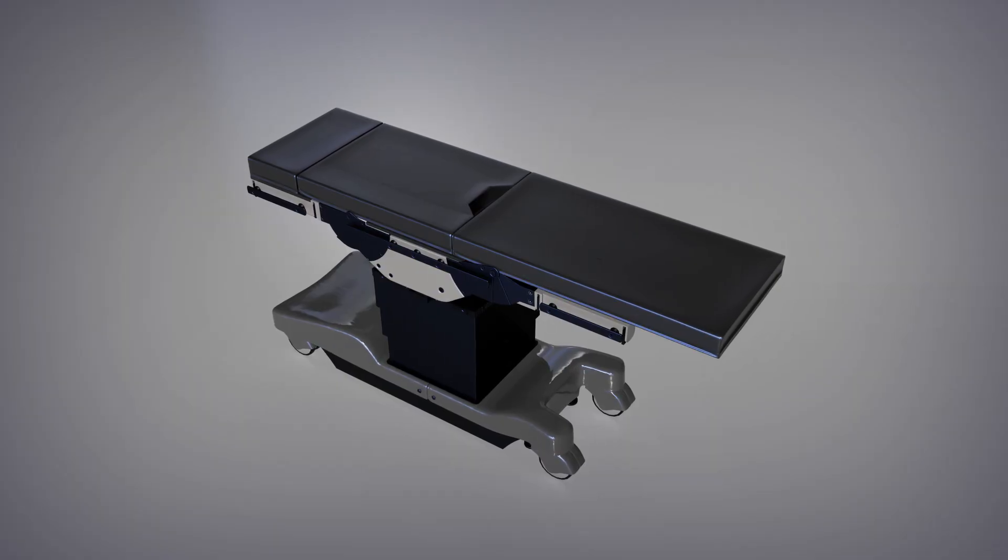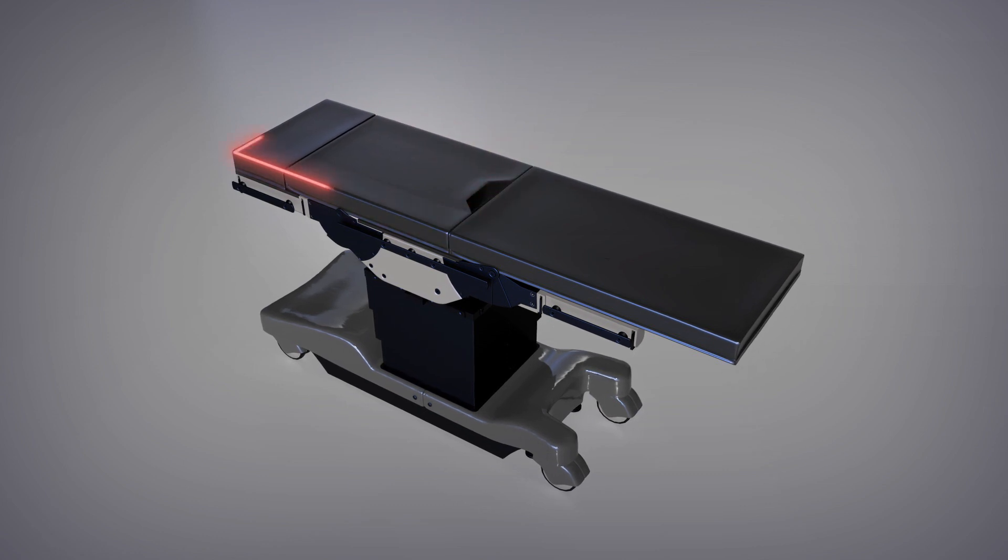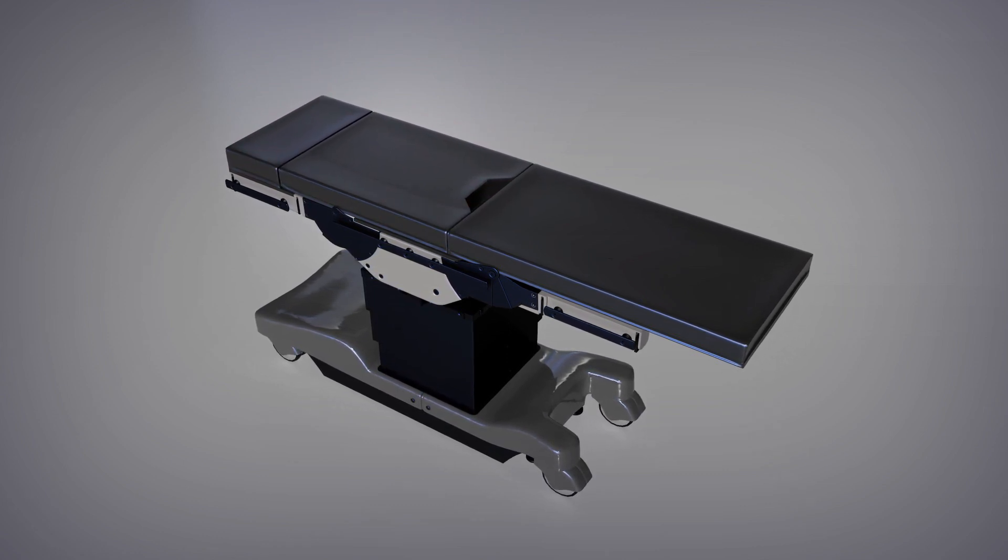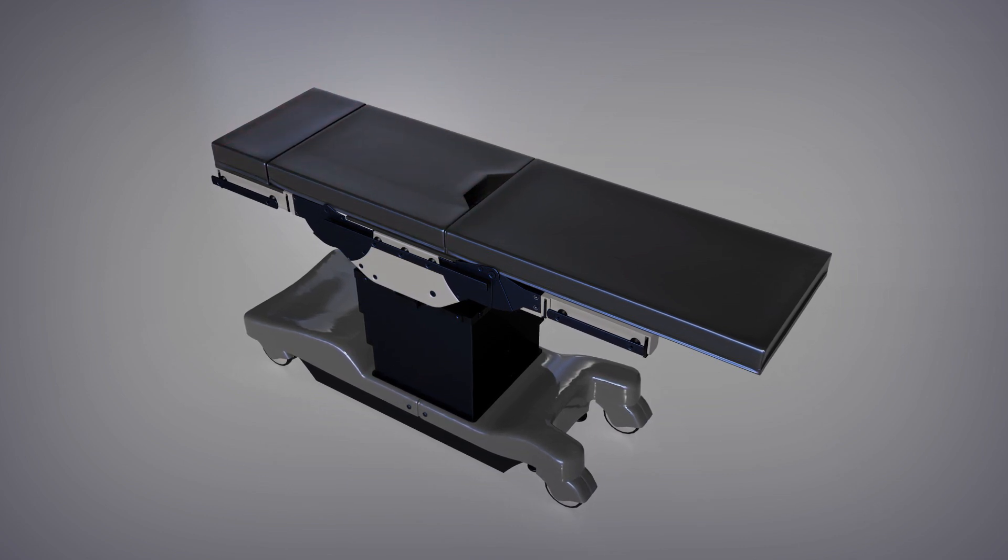Before placing the PrimePad on the OR mattress, please ensure that the OR mattress itself is fully attached to the OR table, that it is clean and dry, and that there are no other materials between the OR mattress and the PrimePad.